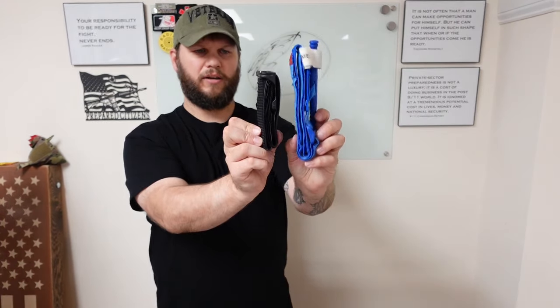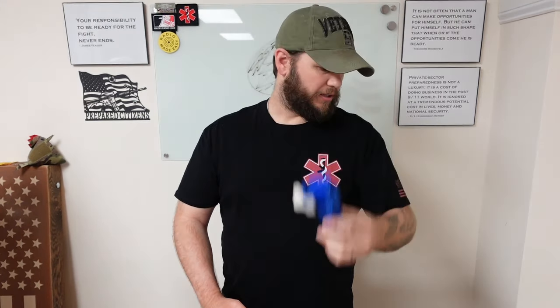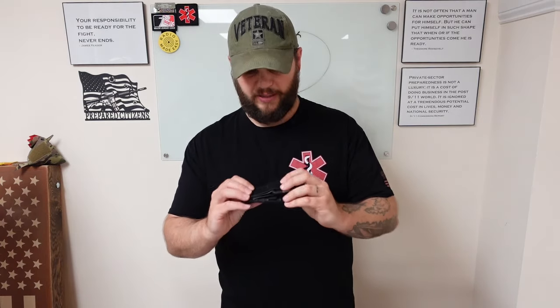This CAT-style tourniquet is not something you're going to carry in your pocket every day. These are excellent tourniquets — great to put on kits. I designed a set mount and I've got another mount coming. This is not something you carry every day; it's great to keep on your tactical kit. I do keep a couple in the vehicle. The original CAT-style tourniquets are just really big, so something like this is really exciting — you can put this easily in your pocket, no big deal.